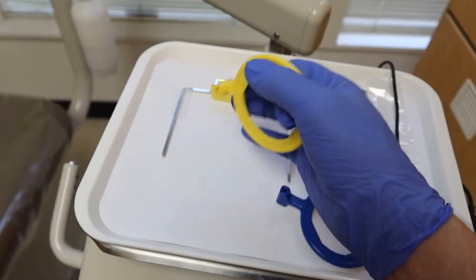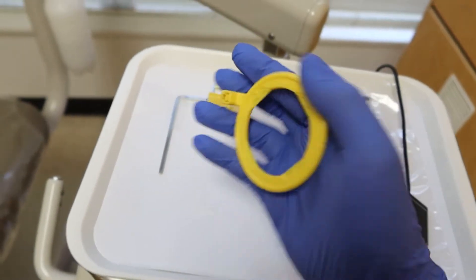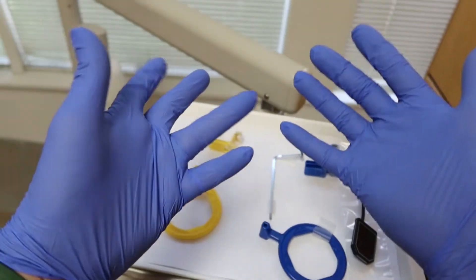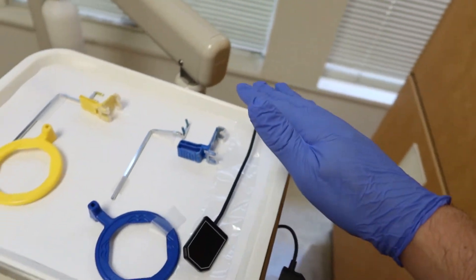We have our XCP ring — what I'm going to call the hole — and in certain portions we've got our pole and our little basket that's going to hold our sensor. These are what we're gonna use on the back teeth. On the front we're gonna use these blue ones. They may come in different colors or shapes, but for the most part: yellow for back, blue for front.